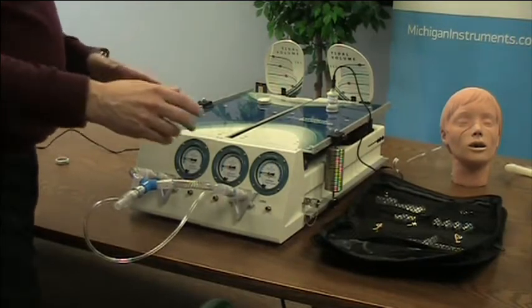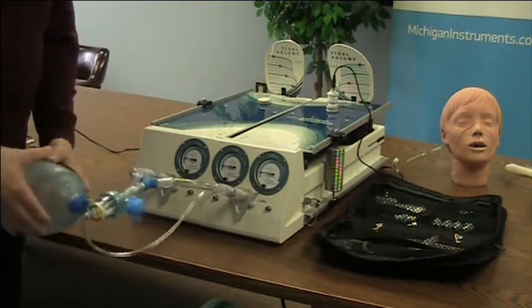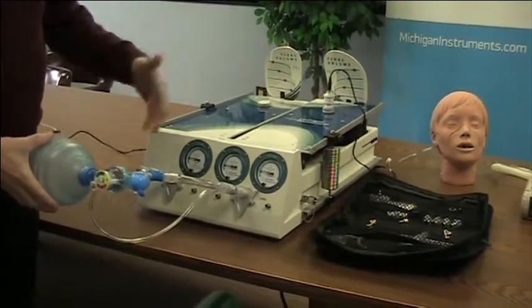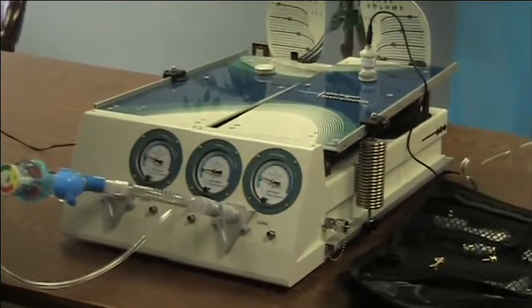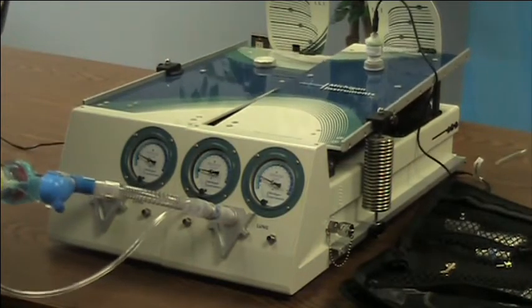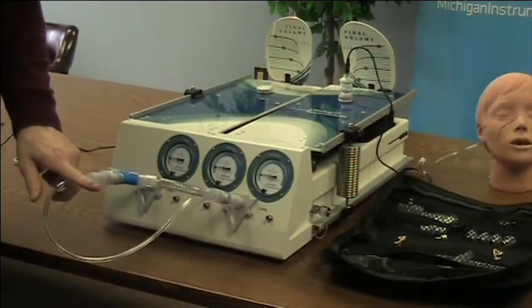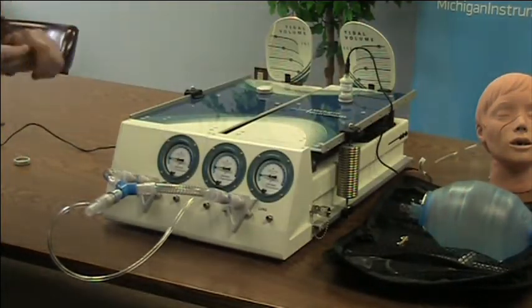Now it's a matter of ventilation. I'm going to hook up a resuscitation bag as a simple ventilator — monitoring volume, monitoring pressures. Both lungs are rising but differently because of the difference in compliance of those lungs. Again I'm using a resuscitation bag, but we can certainly hook up any ventilator to this connector and do that same simulation, that same demonstration.